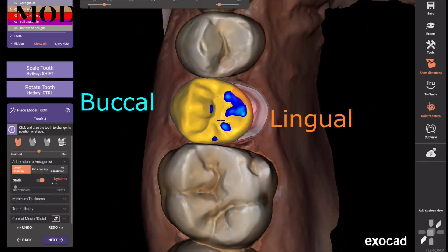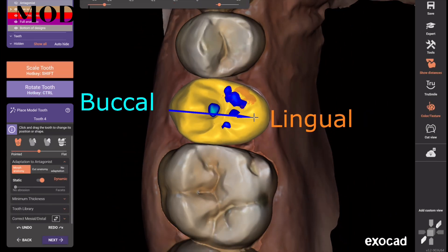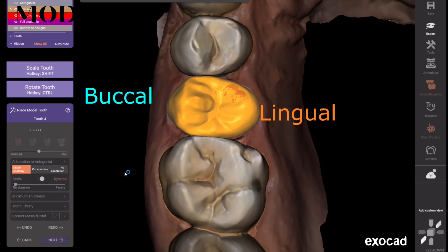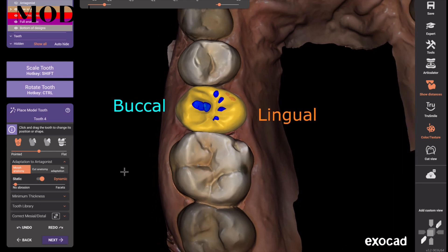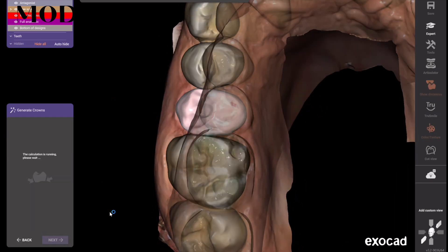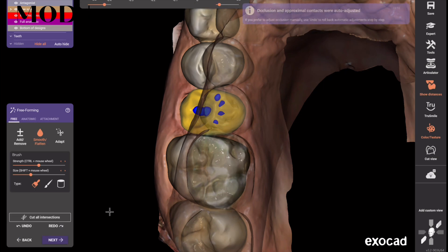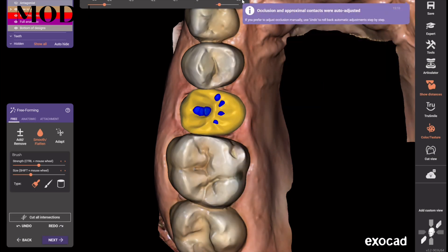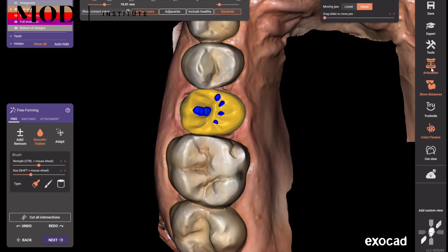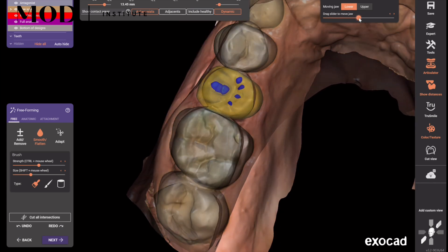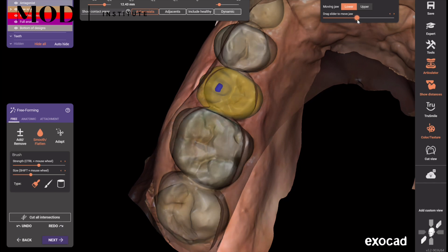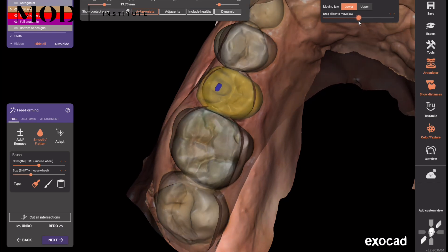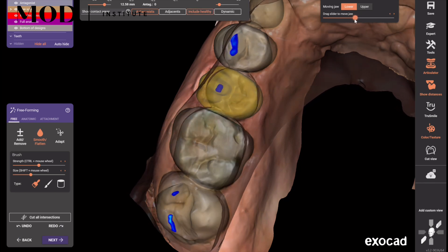Now we're going to design the crown really quick. Exocad is more powerful than CEREC but not quite as easy. Here is a step that CEREC skips — it's like a tooth placement step where you get to tweak a tooth that's not locked down to the margin. It automatically cuts dynamic proximal contact and occlusion. I can tell this patient has group function already, and I'm trying to decide whether or not I want to add it back. I'm going to turn off my dynamic so you can see single-point contact as I slide, and I'll turn on 'healthy' so I can see it on the adjacent teeth.